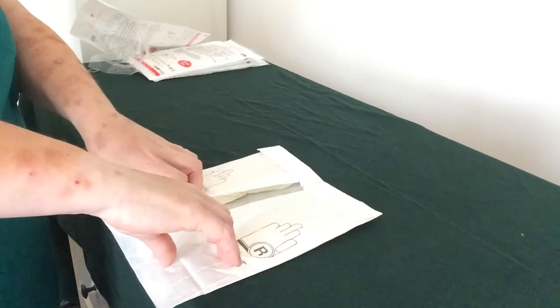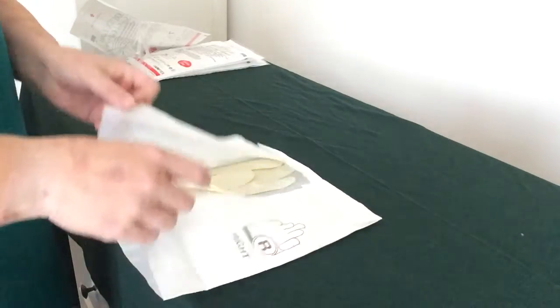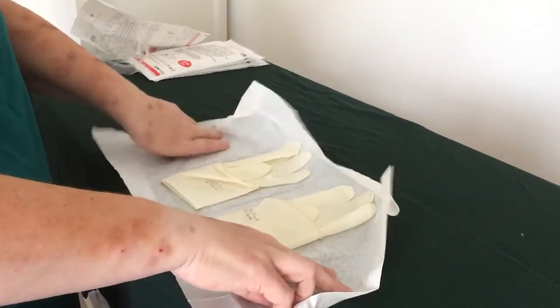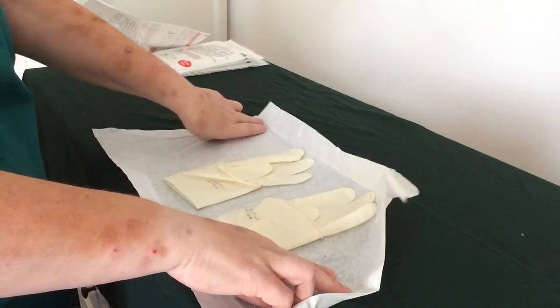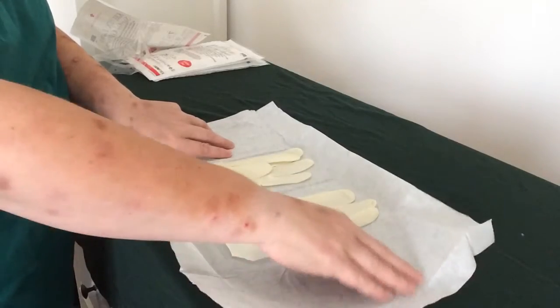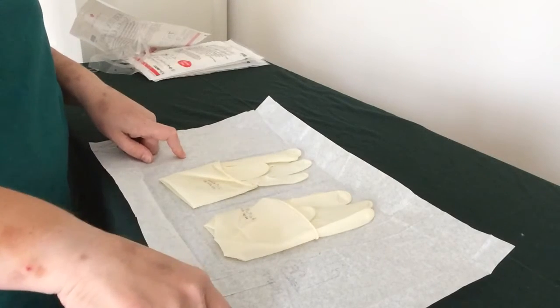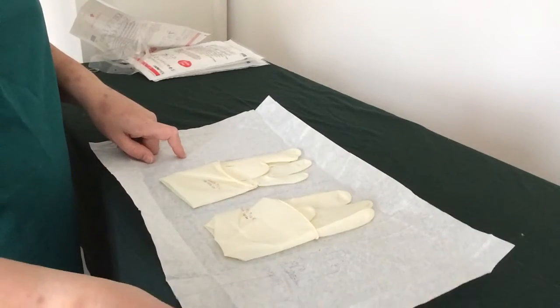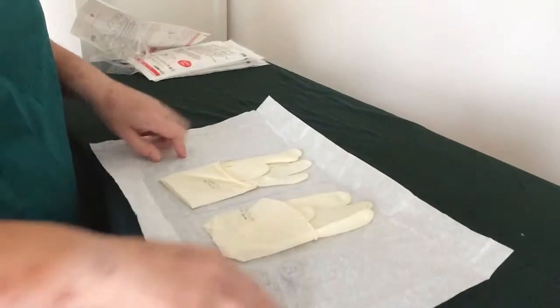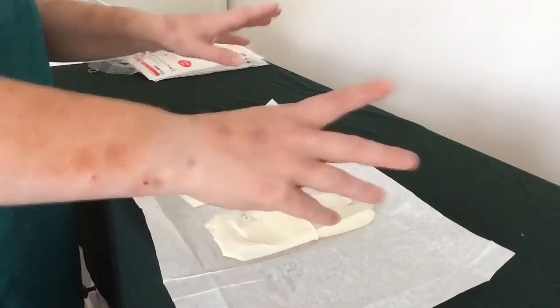I can flip this down because then I can pick up the bottom of these bits here and push out, because then I can touch the inside. I'm pushing down here to flatten the paper. The reason I want to flatten this down is that if you leave it folded, the weight of that paper will make it flap up again. So flatten it — and 15 seconds at the start of the exam? Go for it.